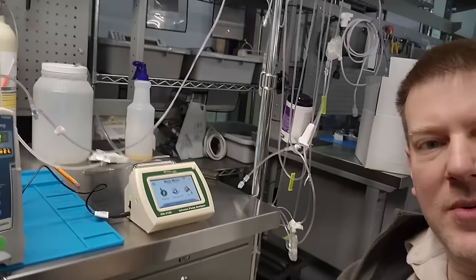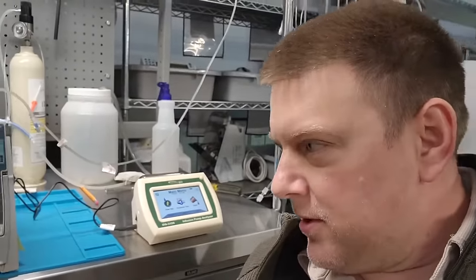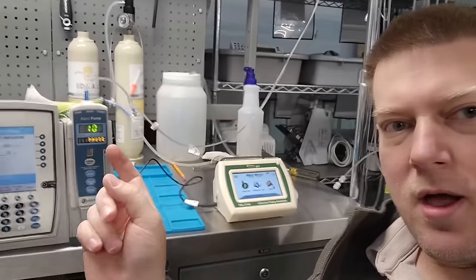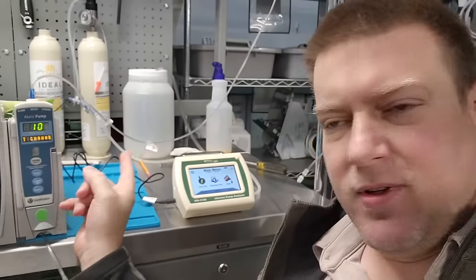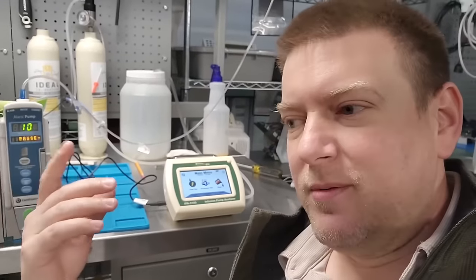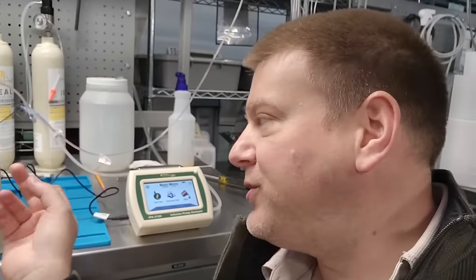Mind you, I have never looked at any instruction manual for this device, and I have never gone through it and ran it yet. So this is my first time to set up on the IPA-3100. We're going to prime it, we're going to run an infusion test and we're going to test the accuracy. Given this isn't to be used as definite because this pump is in for repair. It had some infusion pressure sensors that were changed out and it needs a calibration itself. Let's go ahead and run it. I'll show you step by step how to prime it, how to run it, and how to drain it.